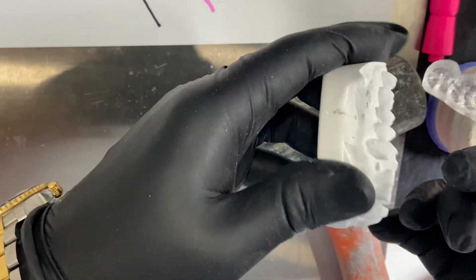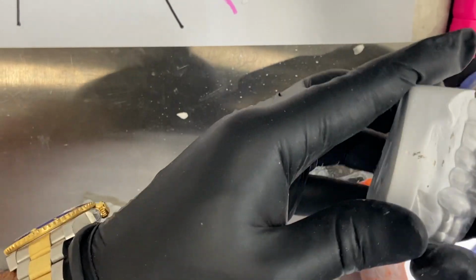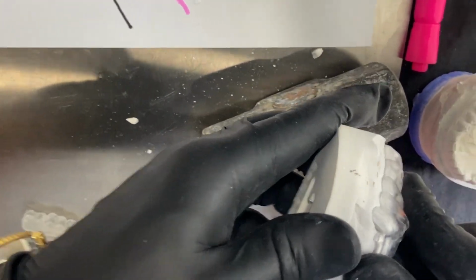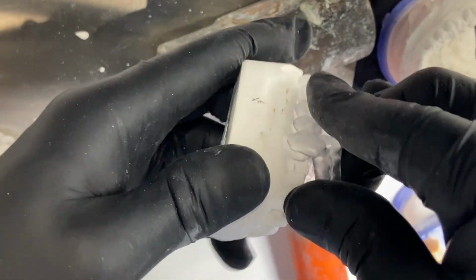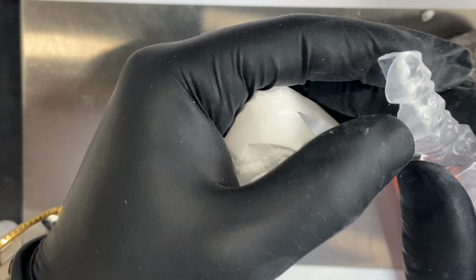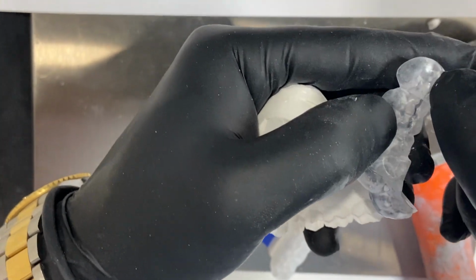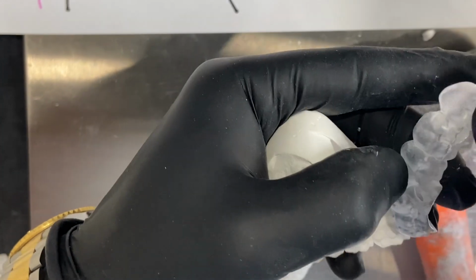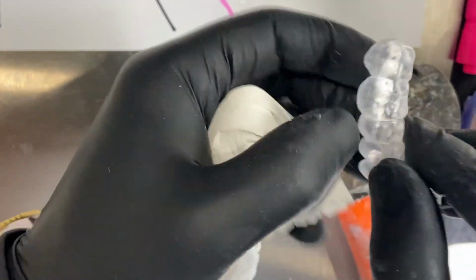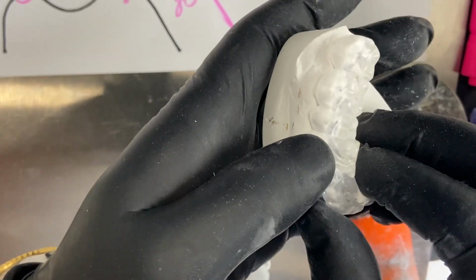Because at the time that you deflect this surface, not in this one because this is quite thick and we have big space, but when the patient tries to lift it on one side, all this torque is expanding this internal wall in a PMMA material, for instance, that is not flexible at all, and that would create some cracks that happen here, and mostly in the second molar, that line can delaminate the entire two molars. Unfortunately, this is all patient handling.